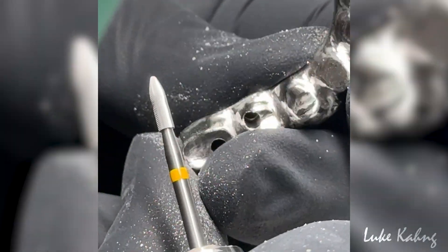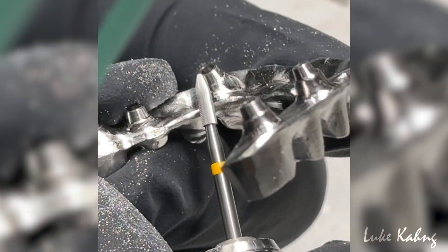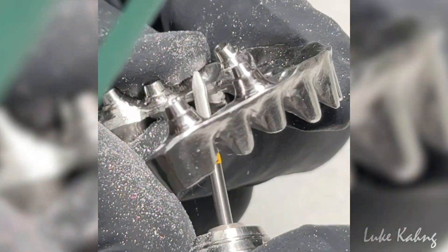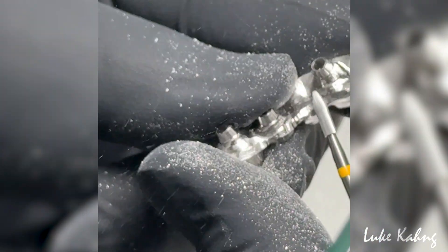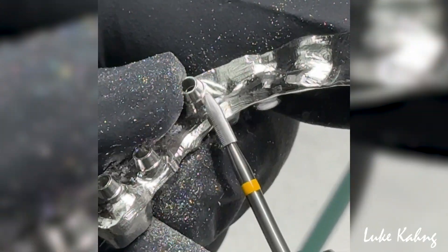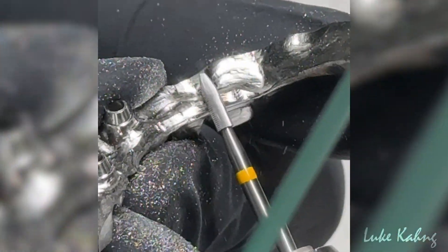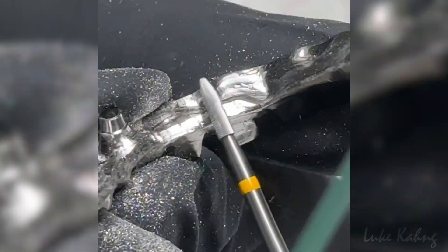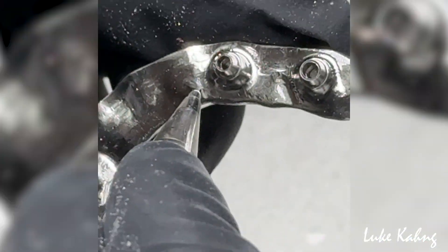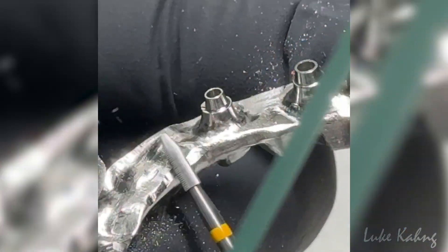I don't need this area. I have to bring down more — I'm trying to make the modifications as much as possible. See, I decrease it. I don't need this — it's all here. I'm going to cut it.